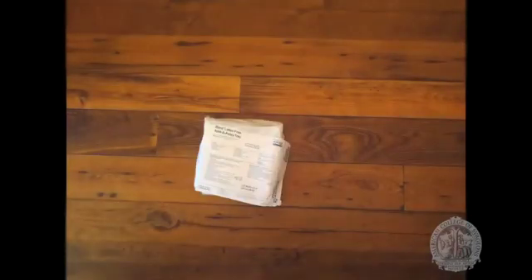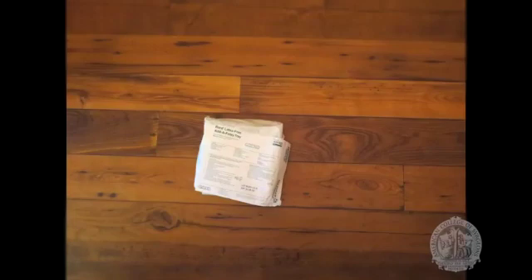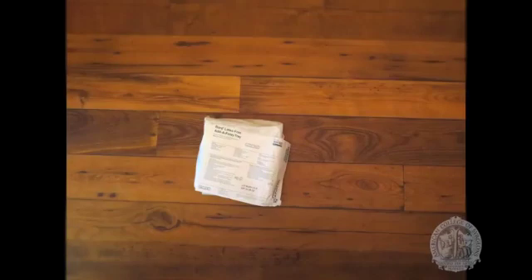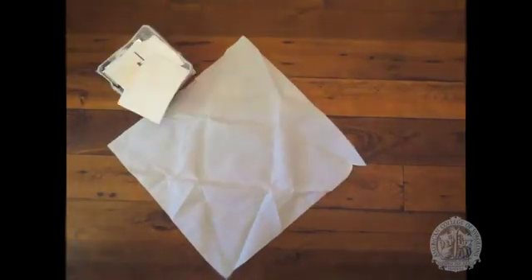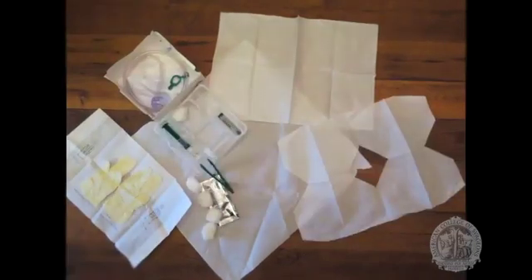Let's briefly talk about the supplies you'll need for placement. Most institutions use commercially available catheter insertion kits that contain all the necessary items for catheter insertion. In that case, all you'll need to do is look on the outside of the box and choose the appropriate size catheter for your patient. 16 or 18 French is typical in an adult. Sometimes the catheter is packaged separately, so make sure you're choosing the right kit.